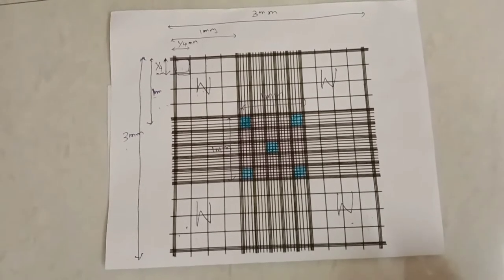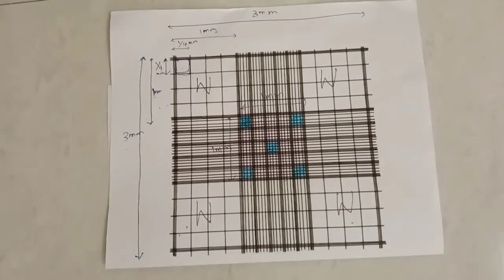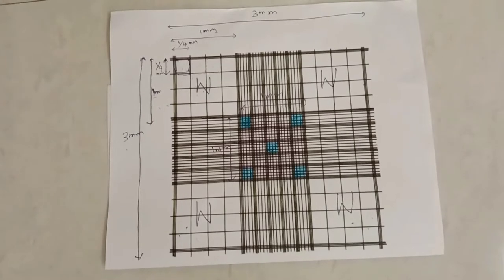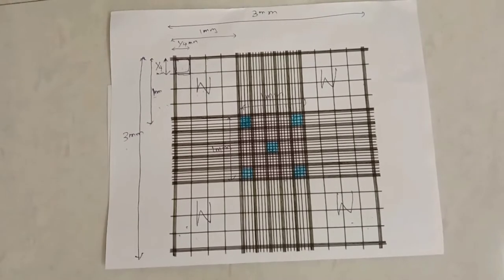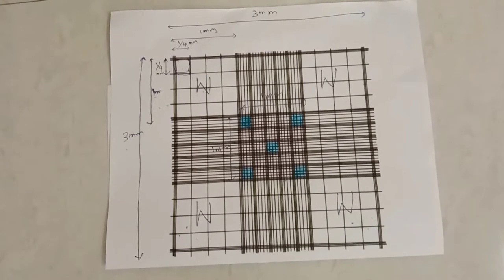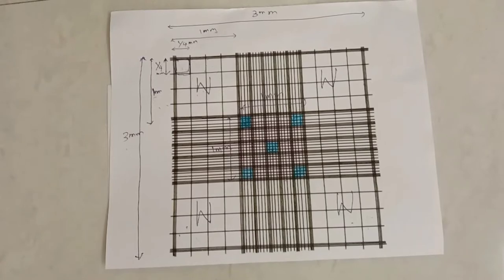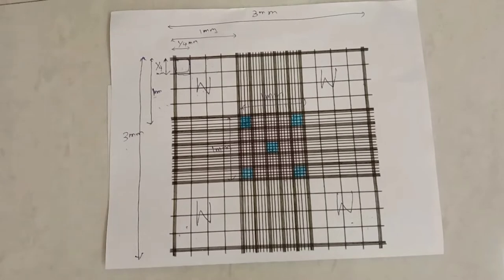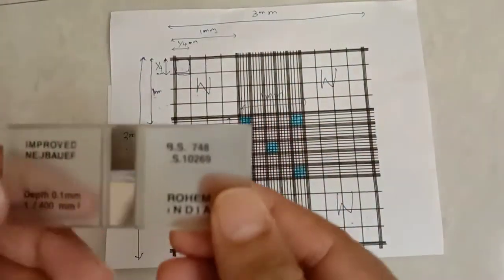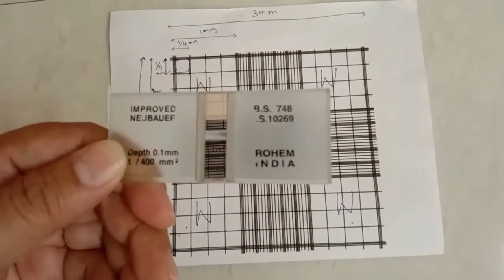In this video we are going to discuss how to calculate the formula for RBC counting and platelet counting by direct method. As we know, in both these experiments we require the improved Neubauer chamber slide.